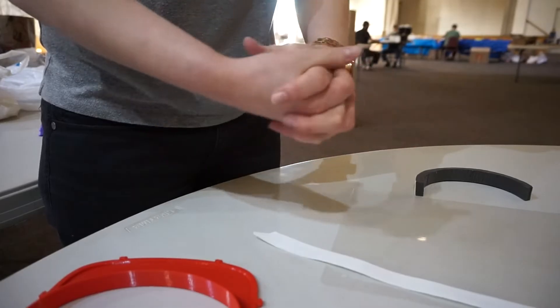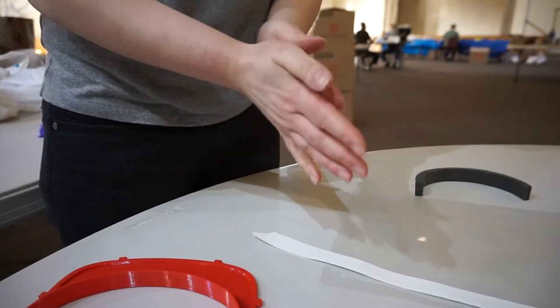Ensure that all parts have been disinfected. Put on a mask and clean your hands before assembling.